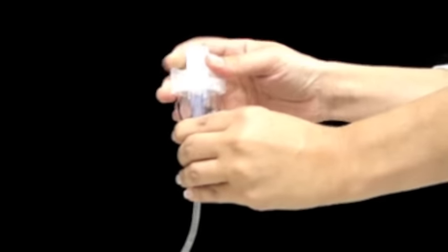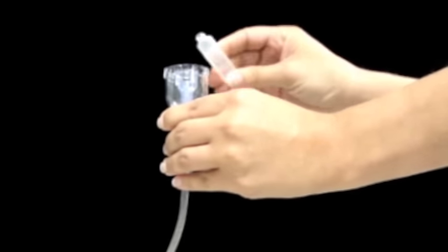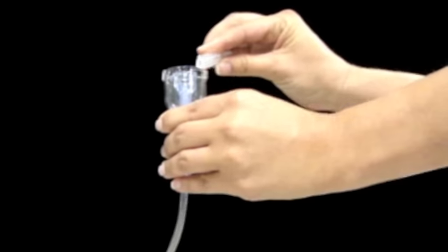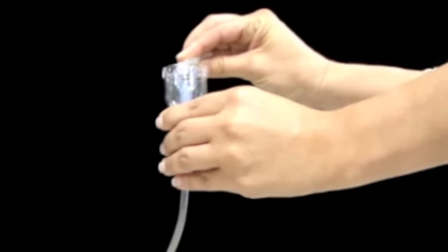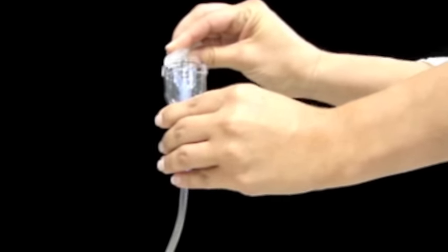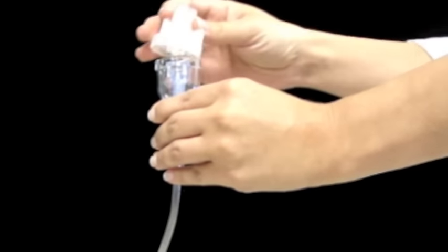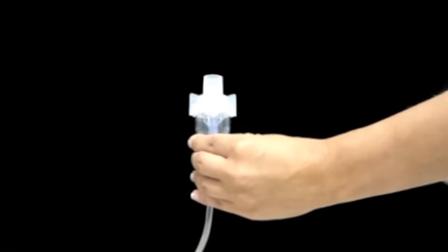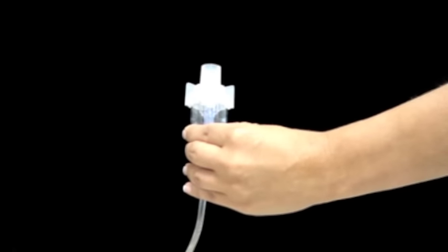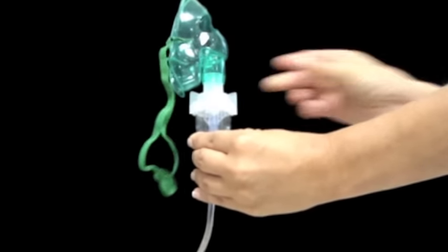Open your medication cup by twisting the lid and add the medication prescribed by your health care provider. Make sure you add the medication along the side and not down the center of the cup. Replace the top on the medication cup.